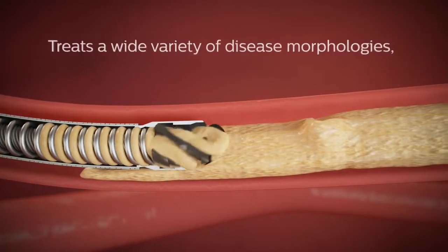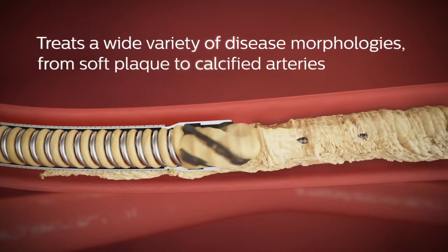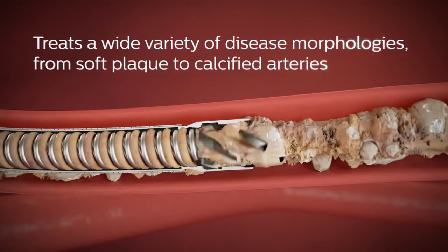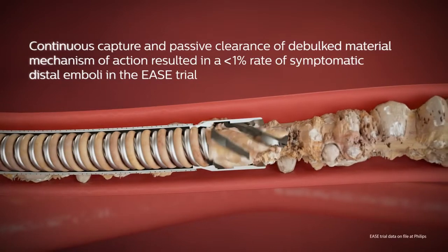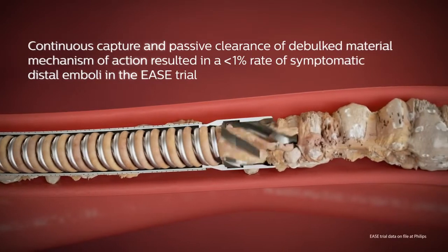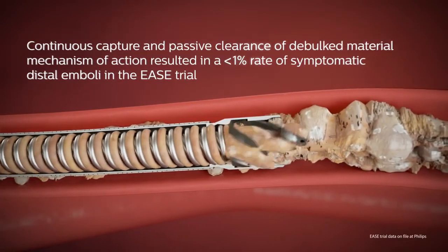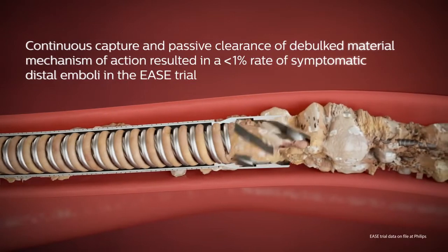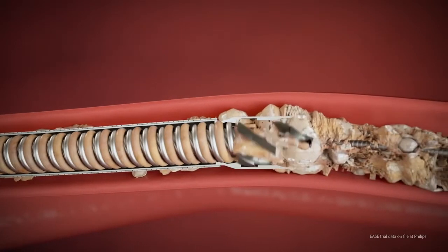Phoenix treats a wide variety of disease morphologies, from soft plaque to calcified arteries. Its continuous capture and passive clearance of debulked material mechanism of action resulted in a less than one percent rate of symptomatic distal emboli in the EASE trial.